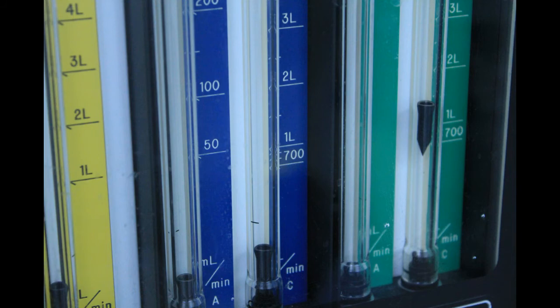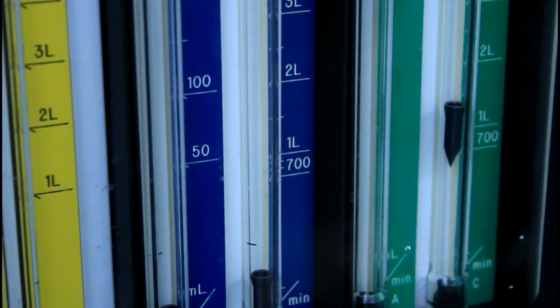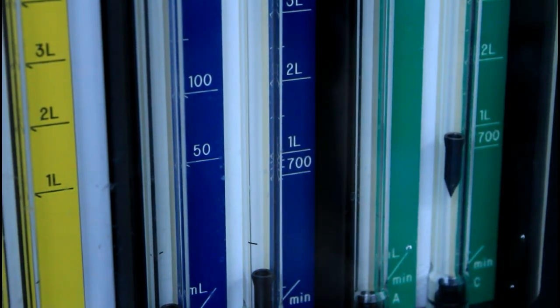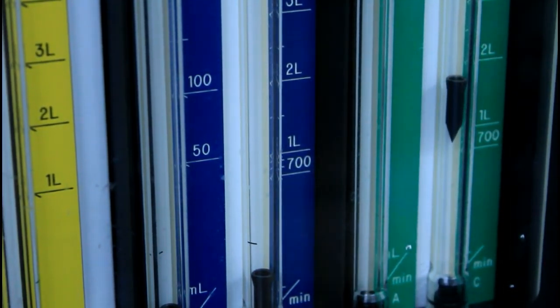The rotometers need to be checked to see if they are still rotating, because sometimes they can stick. There should be a dot on the rotometer that allows you to see if it is spinning. Turn the gas flow up and down and look for the dot to see if the rotometer is spinning with the changes in gas flow.